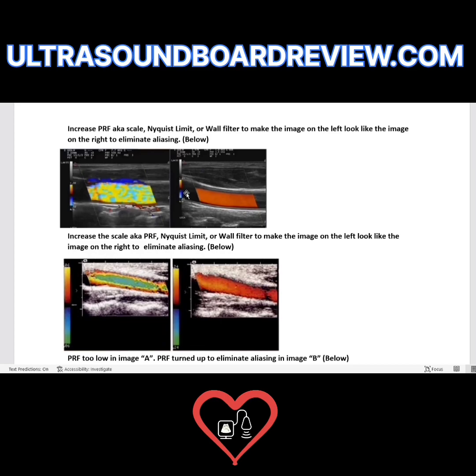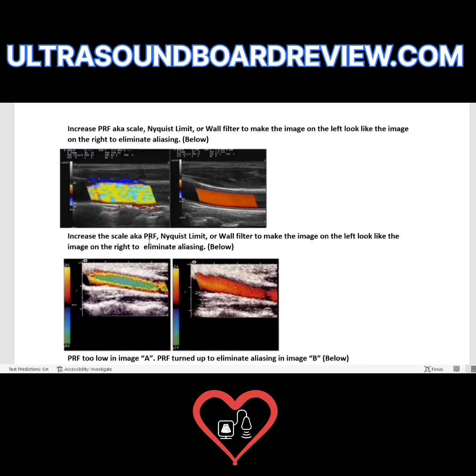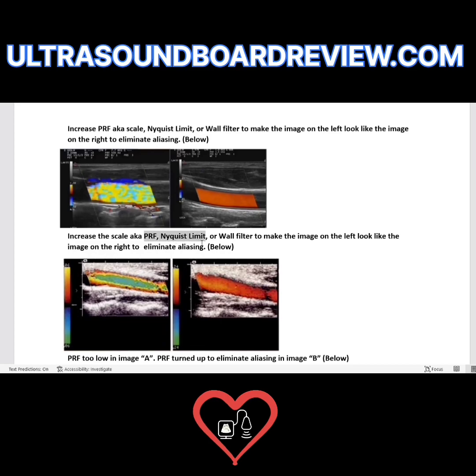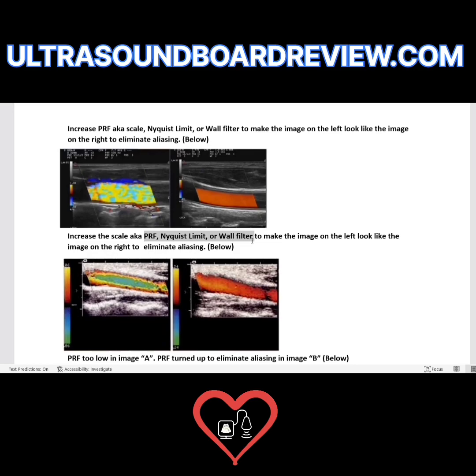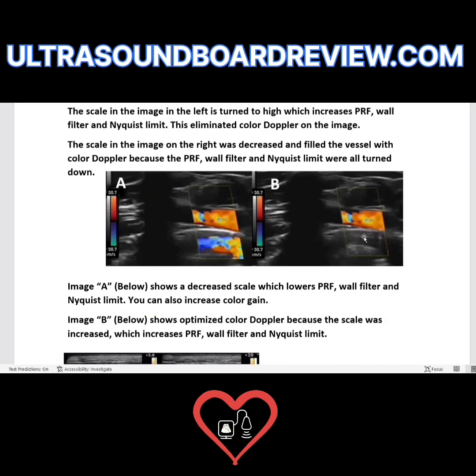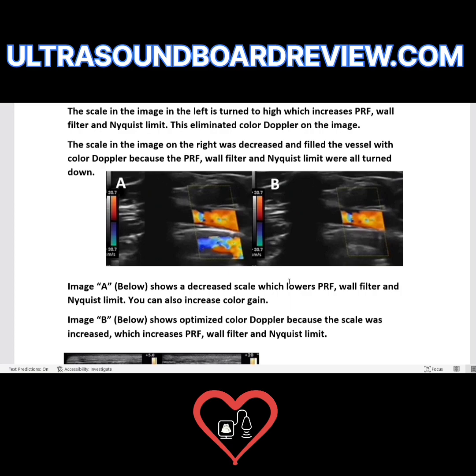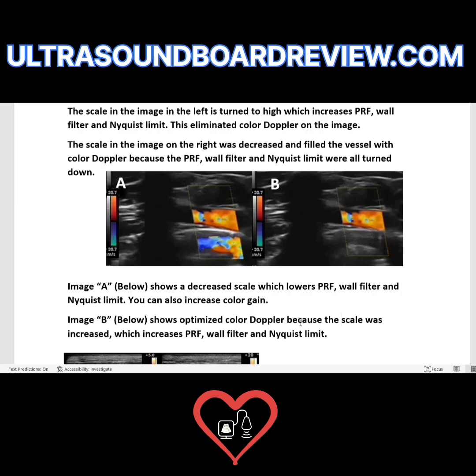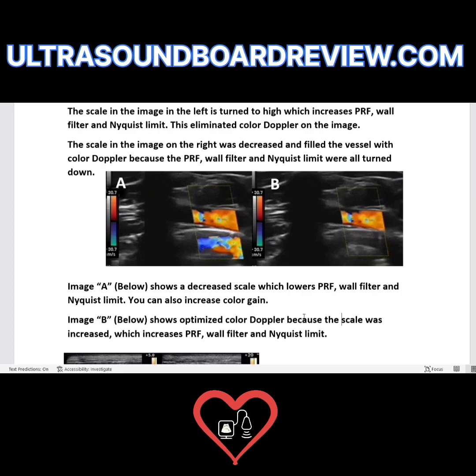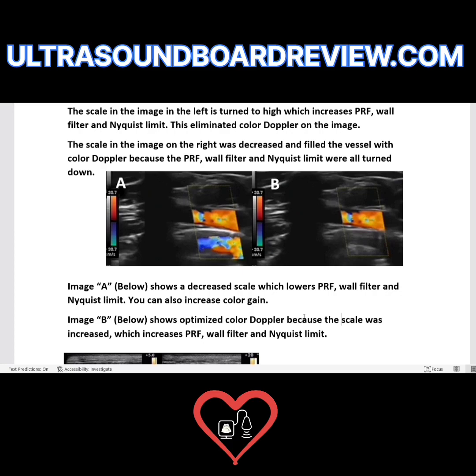How do you make image A look like image B? Your first thought is to go for the PRF or scale — that's embedded in your head from day one.